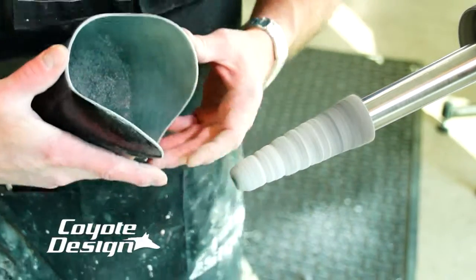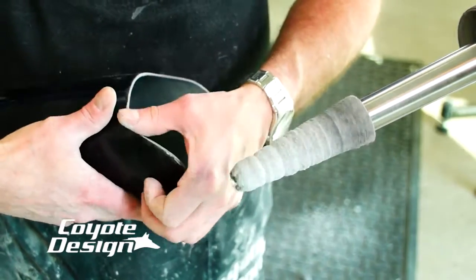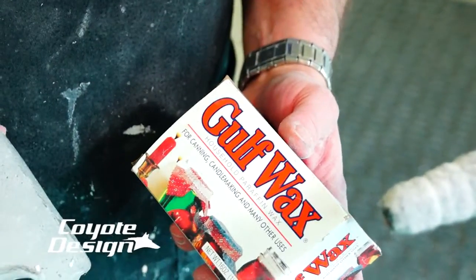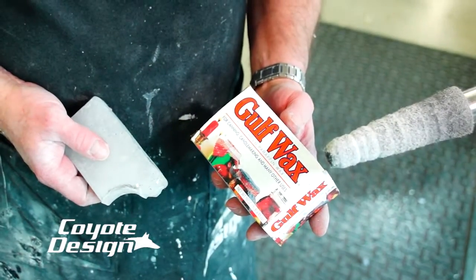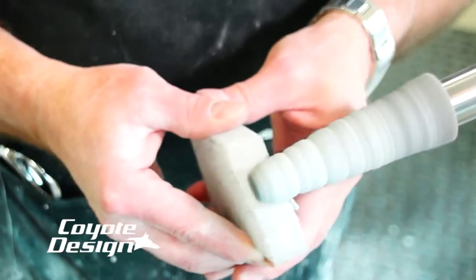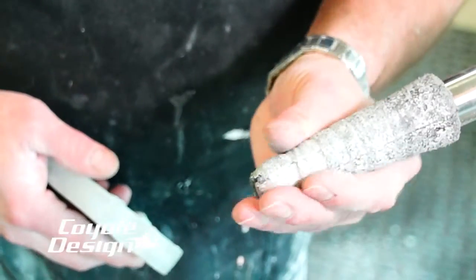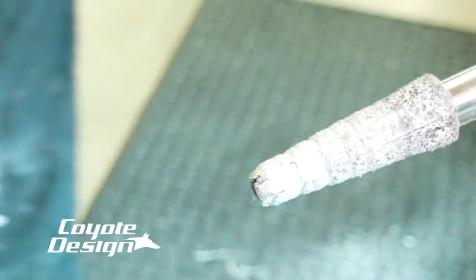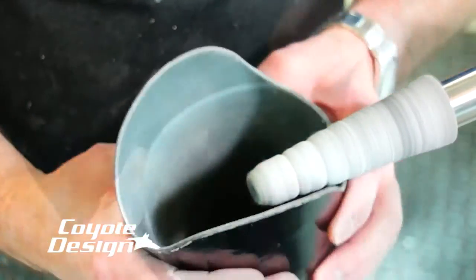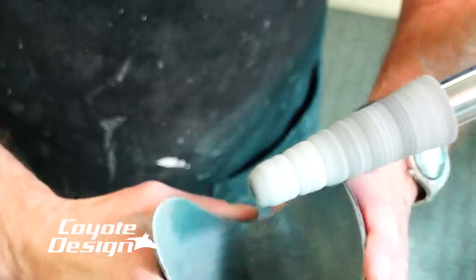At this point I'm done. But if your edge still feels a little abrasive to you, part of it's due to just the dryness of the composite or even carbon braid. What I've found is if I take a stick of paraffin wax — you can get it at any grocery store, just regular canning paraffin wax — I turn the machine on and run that wax across the wheel. It builds up a little bit of a coating on the wheel. Then I kick it back on slow and just work my edges over again. That little bit of wax acts as a coating and takes the dryness off of the edge of the lamination. I found that the slow wheel with my finishing cones was 90% of the trick to getting them smooth.